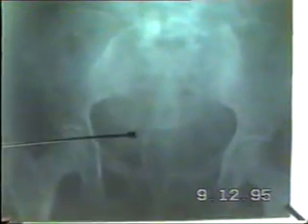Here is a radiograph of a pregnant woman's abdomen and pelvis, AP view. It shows the baby's head well above the pelvic inlet; however, the pelvis appears to be of adequate size and shape. Of interest is a scalp electrode which has been attached to the baby's scalp, with the electrode wire seen going out of the patient's pelvis and vulva. This electrode is used for intrapartum electronic fetal heart rate monitoring by recording the fetal ECG signal. This woman was in labour, being given a trial of labour, and a scalp electrode was attached to assess fetal well-being.